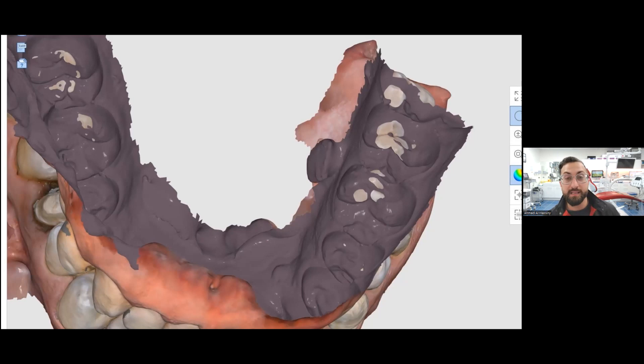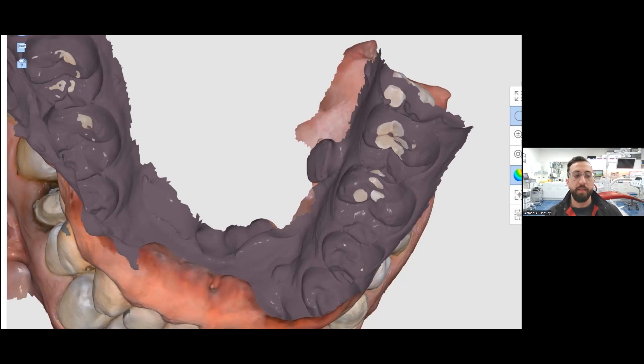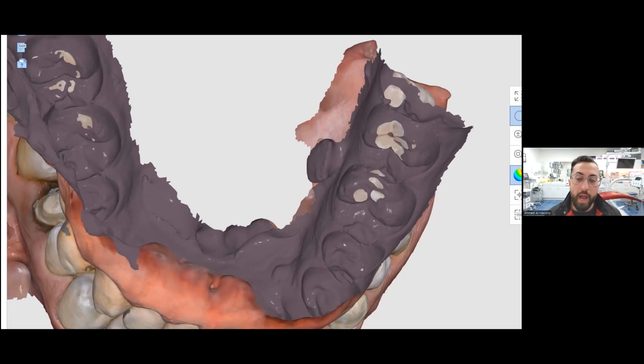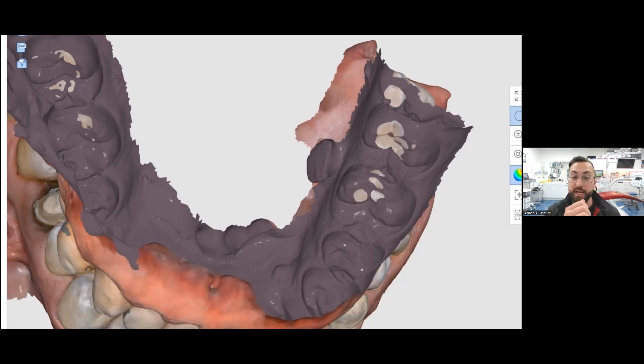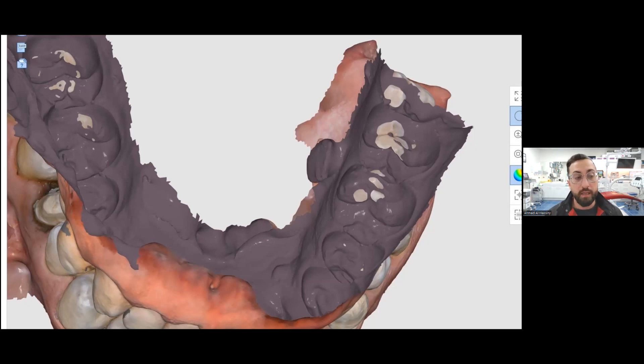As I mentioned, inspect your scans, you should be turning them around and looking at them to make sure there's no significant interference like this. The other prevailing theory of why this happens is software algorithm. Basically, when you take a scan, you've got that one image, the software is now responsible for that alignment. Some software is better than others.